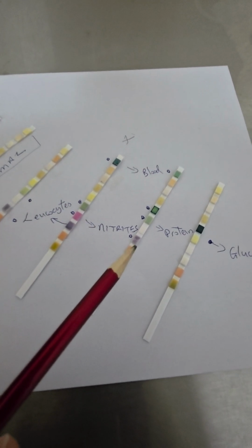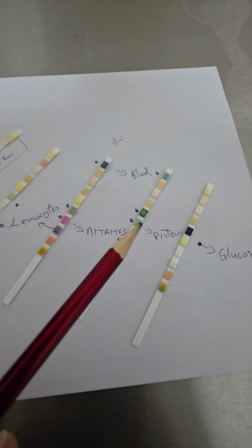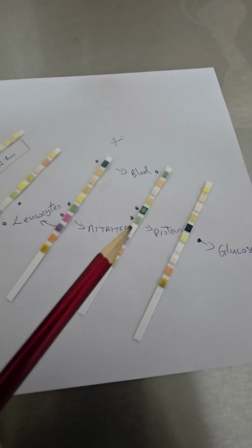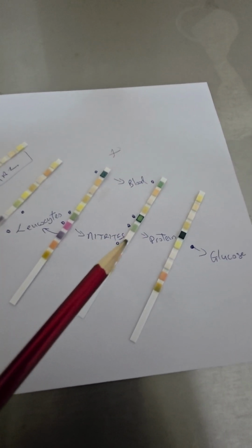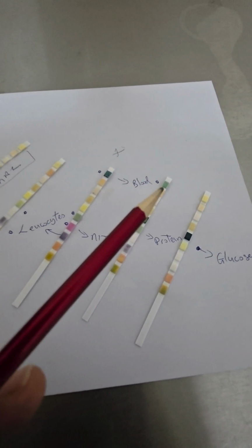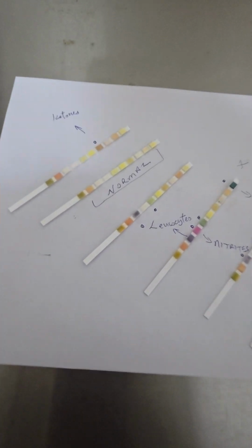This patient also has leukocytes, is possibly a diabetic because of the amount of glucose in the urine, and possibly also there's protein. Maybe, I'm using the words very sparingly, maybe kidney involvement. But as a result, there can be blood being passed in the urine. This patient here has a lot of glucose, but there's no blood. I just wanted to show you this.